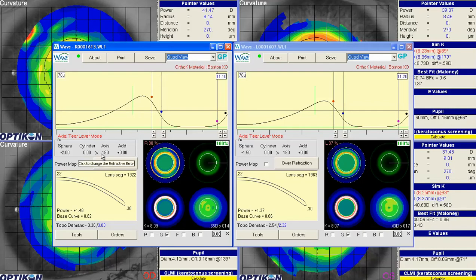Changing the refraction is sometimes it works, but sometimes all WAV does is incorporates new refraction into the front surface of the lens, and the back surface doesn't change.